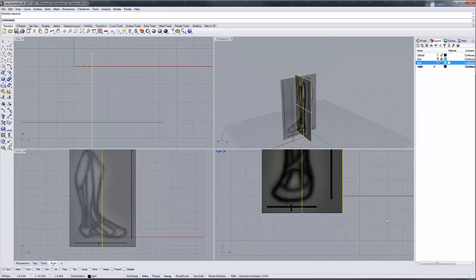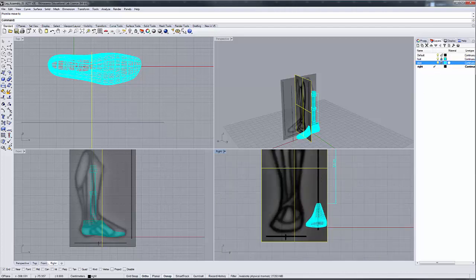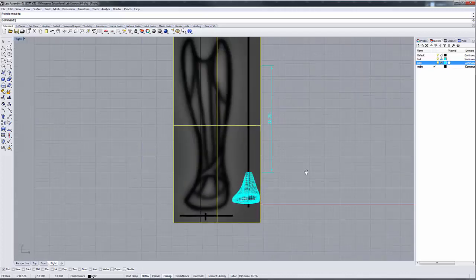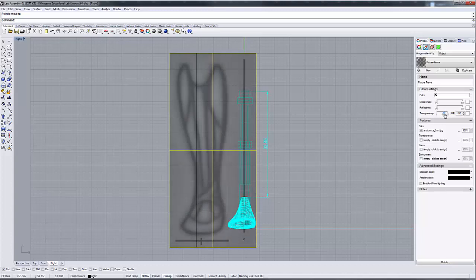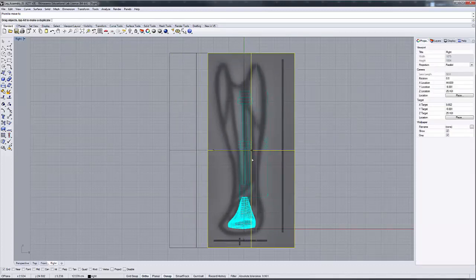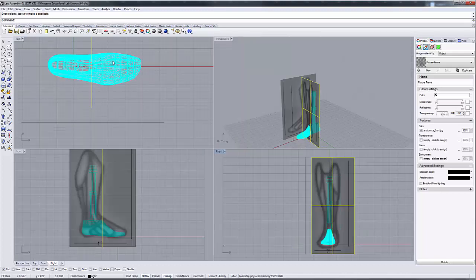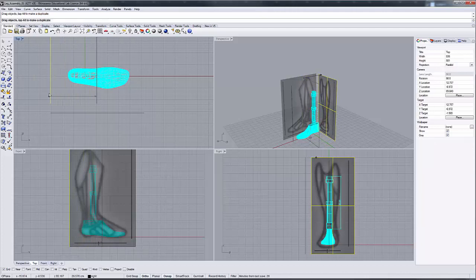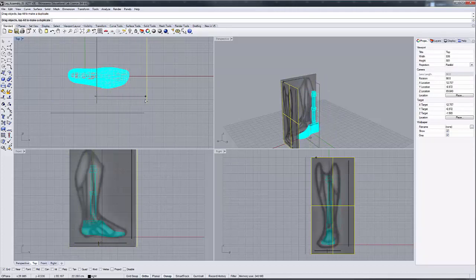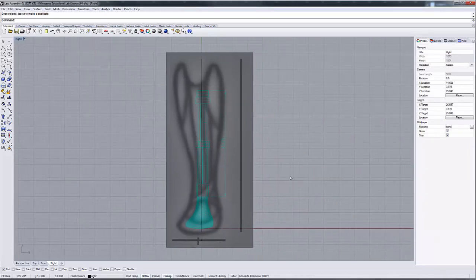Now I'd like to bring back my references. Let me turn on my pipe. I'll go into my properties with this element and set that transparency down. I'm going to slide this over so that it aligns along the center. Once I've done that, I can slide that back in space in that direction to sort of emphasize the foot. I can see my foot as a reference for my model. And that's your basic framework.